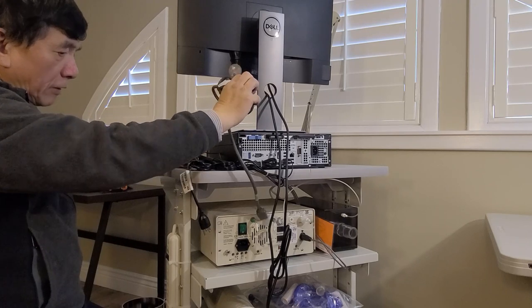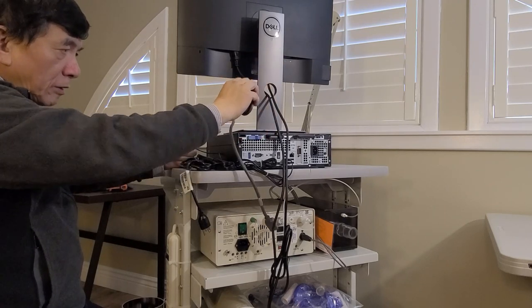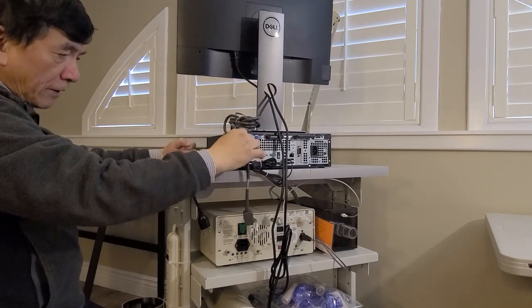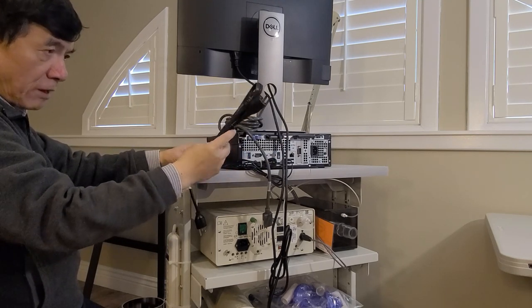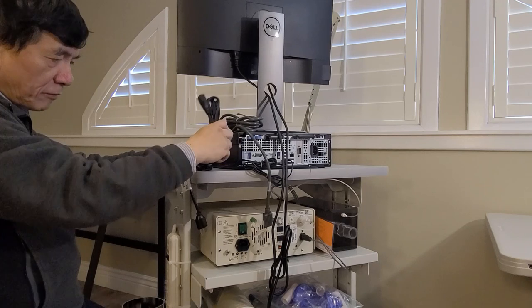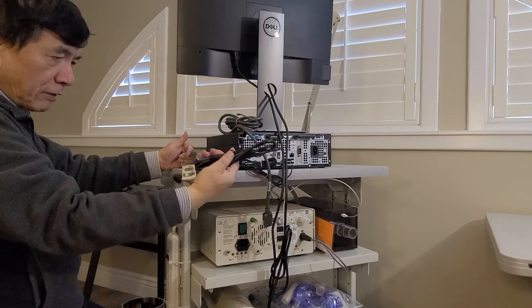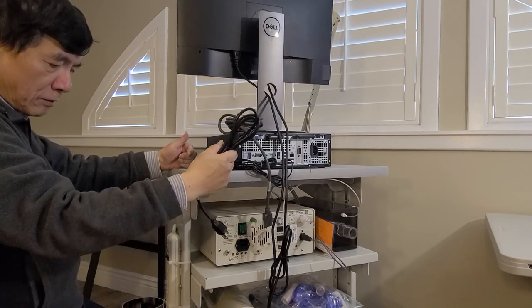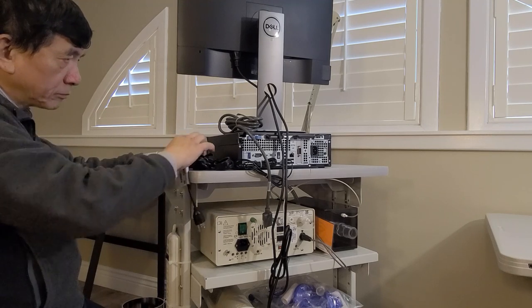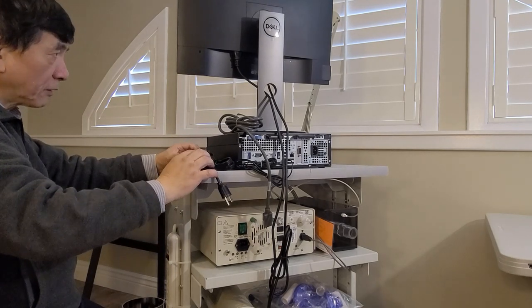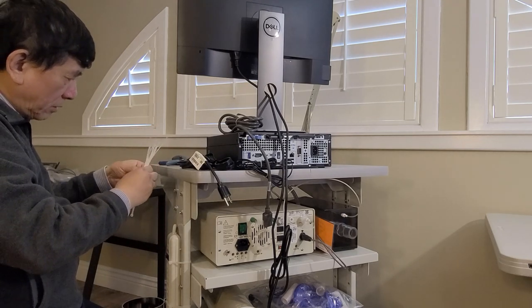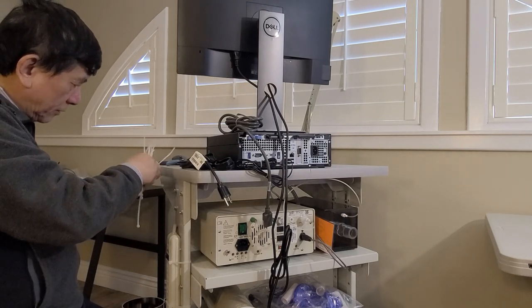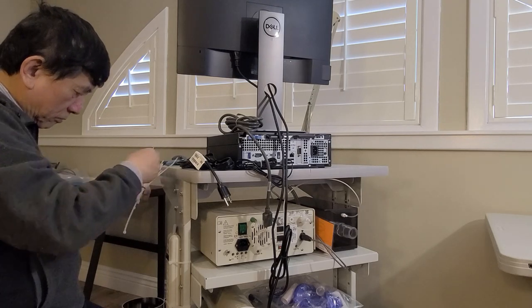Then we have the medical power cord for the analyzer, this flat cable for the computer's power, and this rounded one for the printer. So first, we actually need to tidy up the monitor's cable.